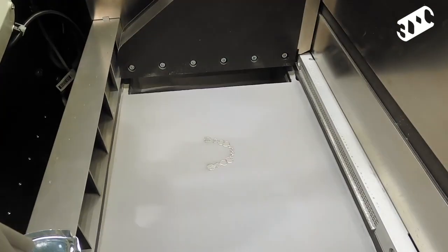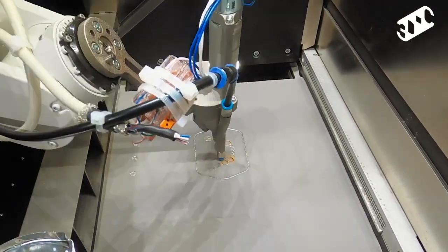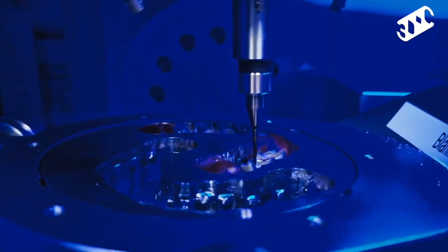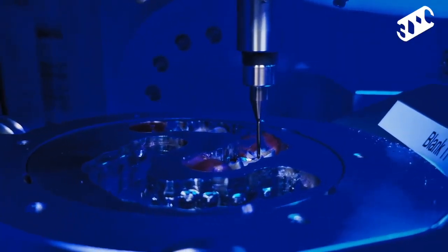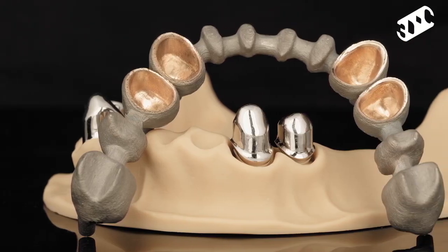Embedded in a fully automated production chain, our multi-material solution can produce crowns 20 times faster and cut 60% of production costs.